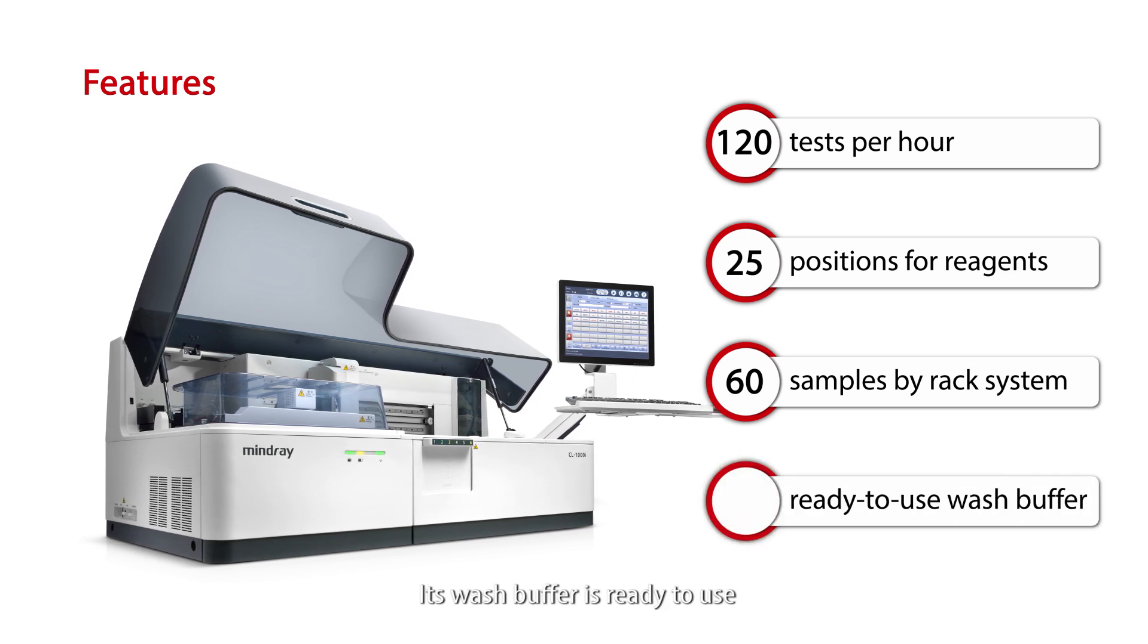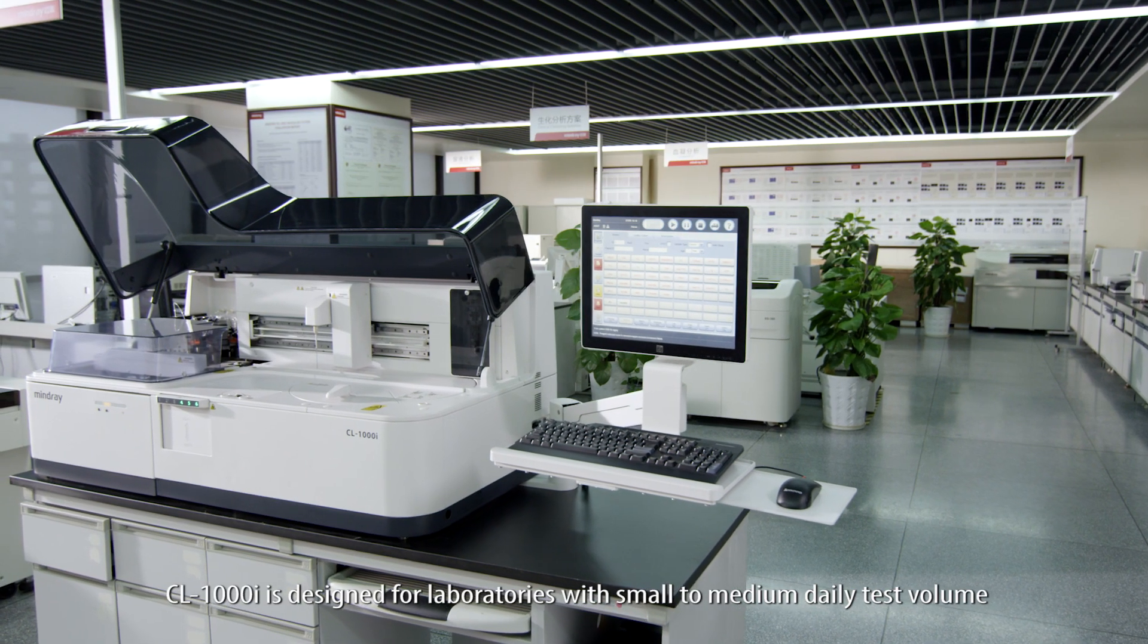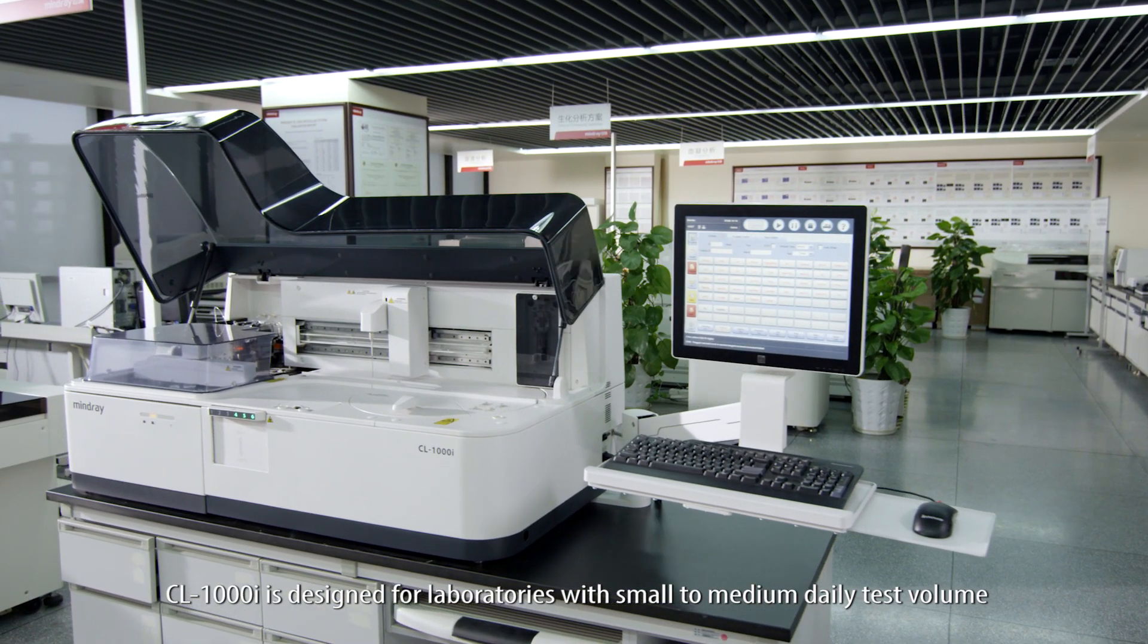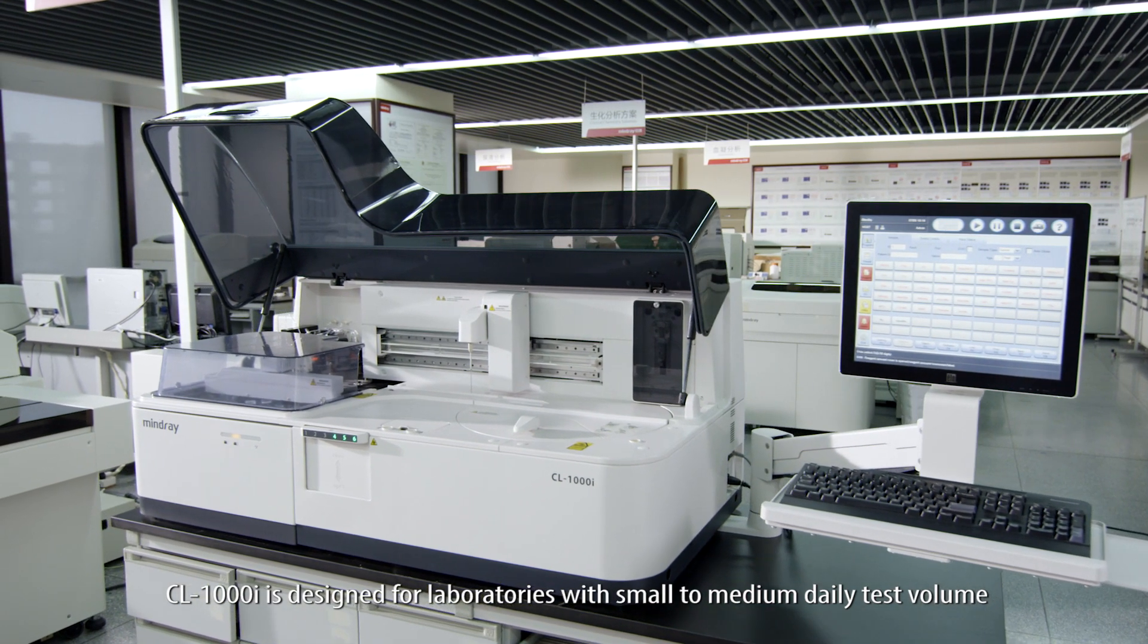Its wash buffer is ready to use. CL1000i is designed for laboratories with small to medium daily test volume.